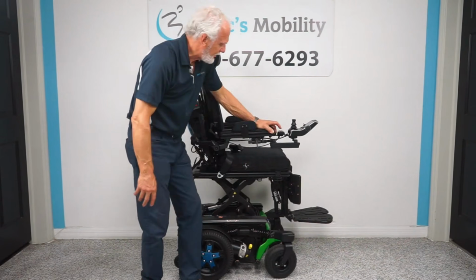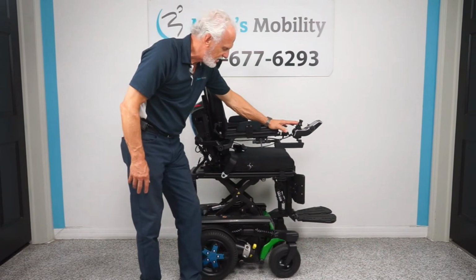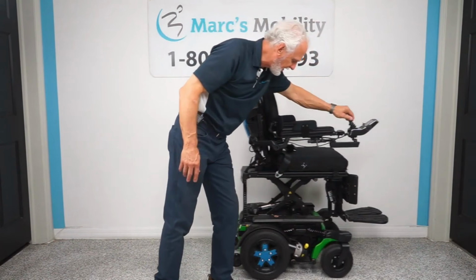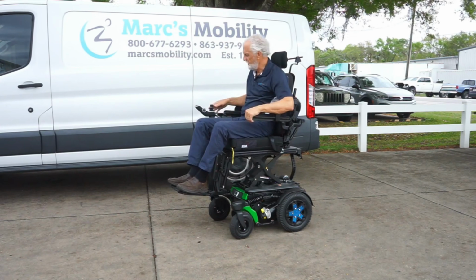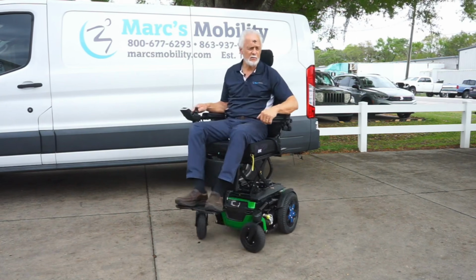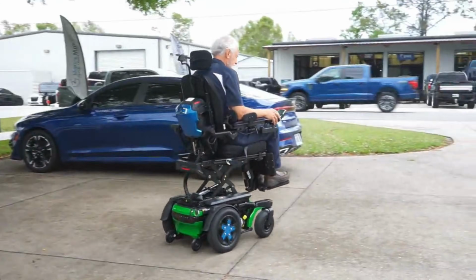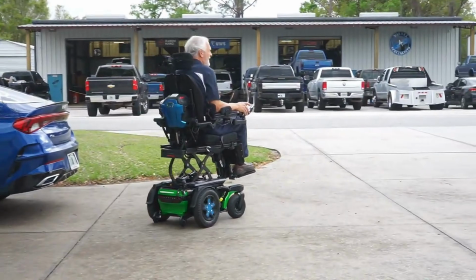Now the R-Track is going to come with either a solid 14-inch drive wheel or a pneumatic drive wheel, so that is an option if you're purchasing one of these new. You're able to get either of the tires, and I do believe you're able to get the large knobby tires on the R-Track as well if you want to have the most possible traction for outdoor usage.